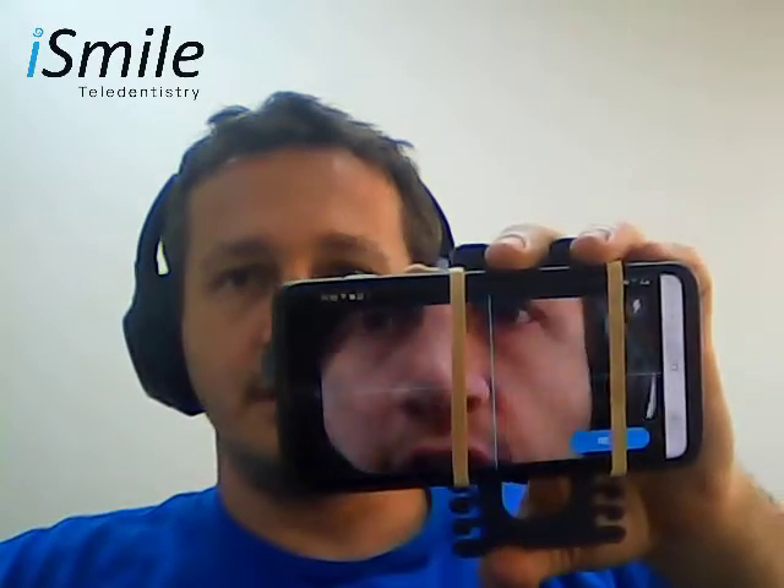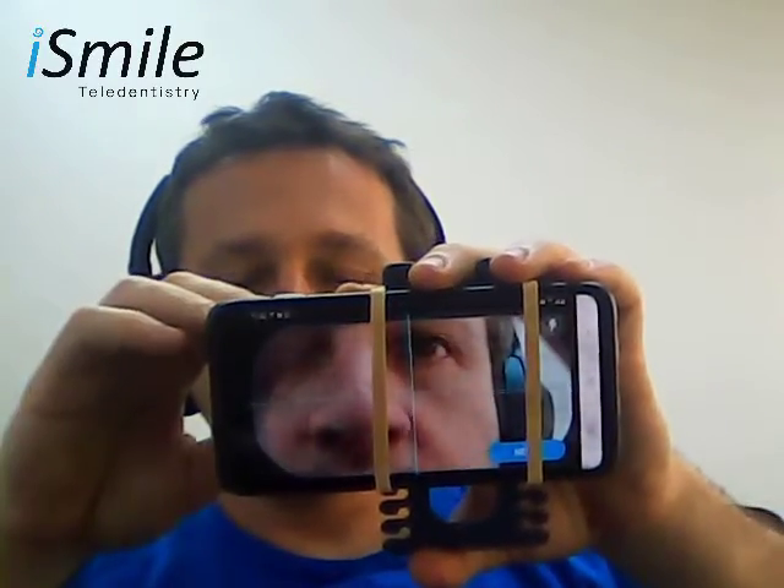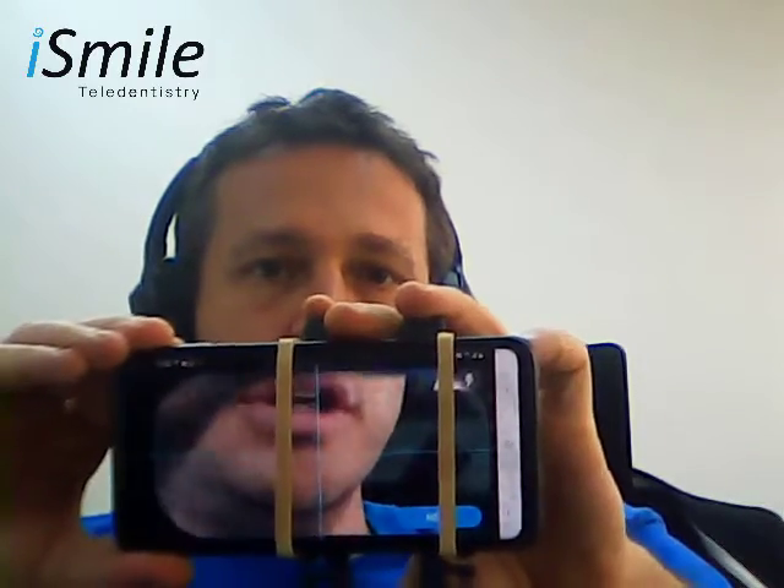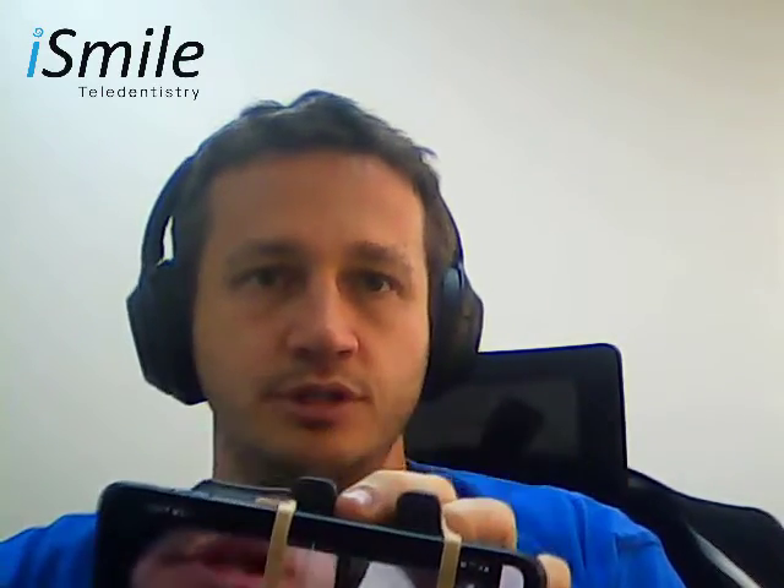This is the desired result. We can see that the phone is zoomed in to match the opening of the scope. If needed, you can nudge your phone around up, down, side to side slightly with your fingers. If you've noticed that the positioning is significantly off, then exit the app and repeat steps one and two to properly align.